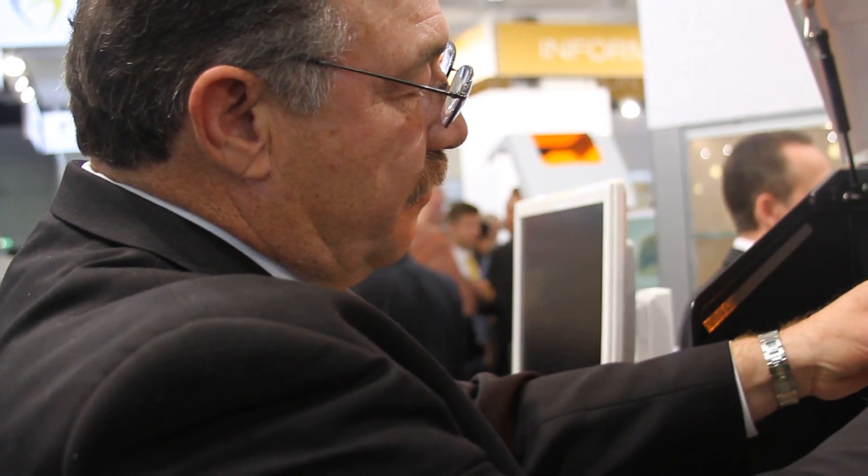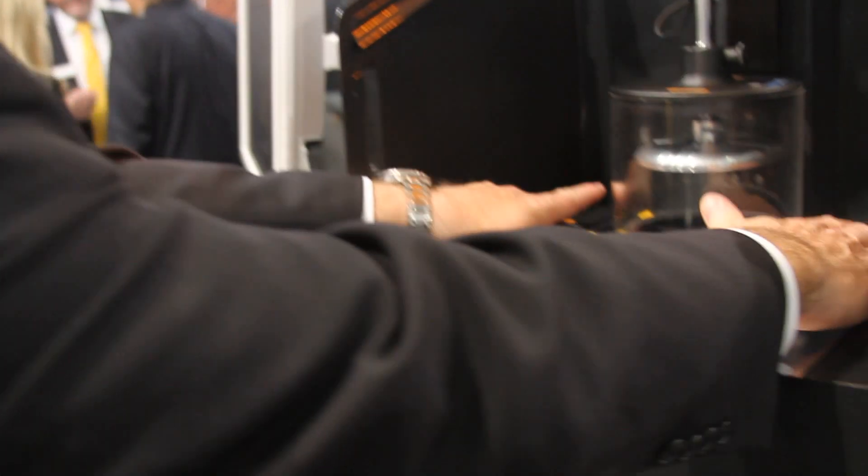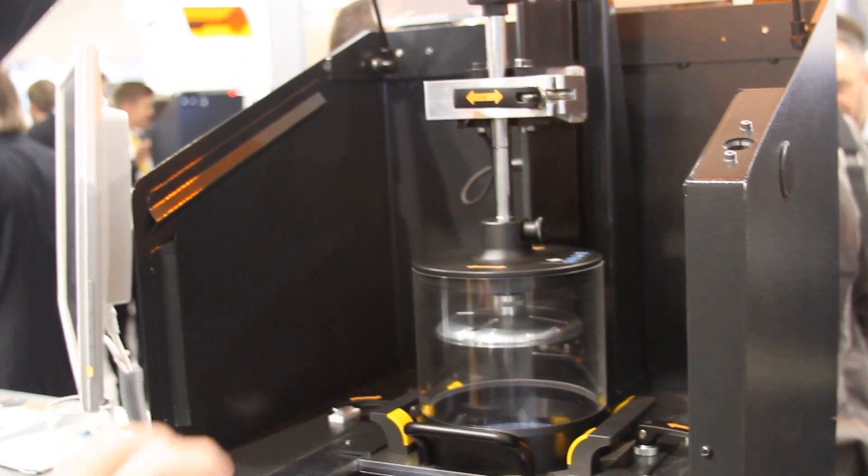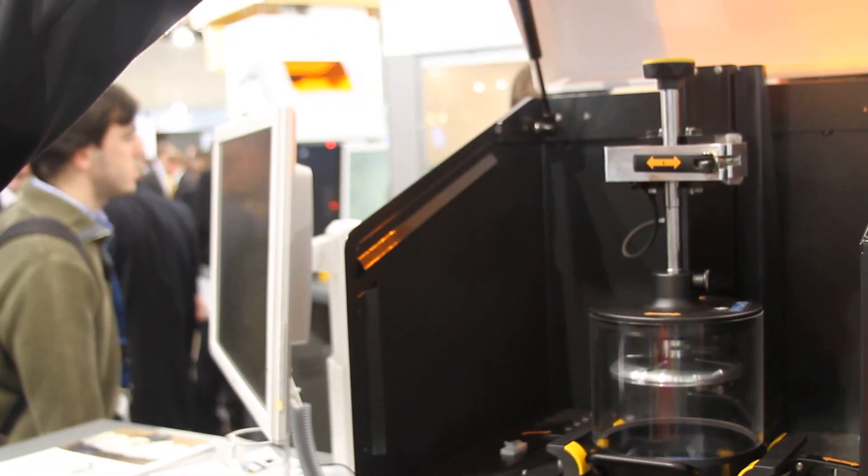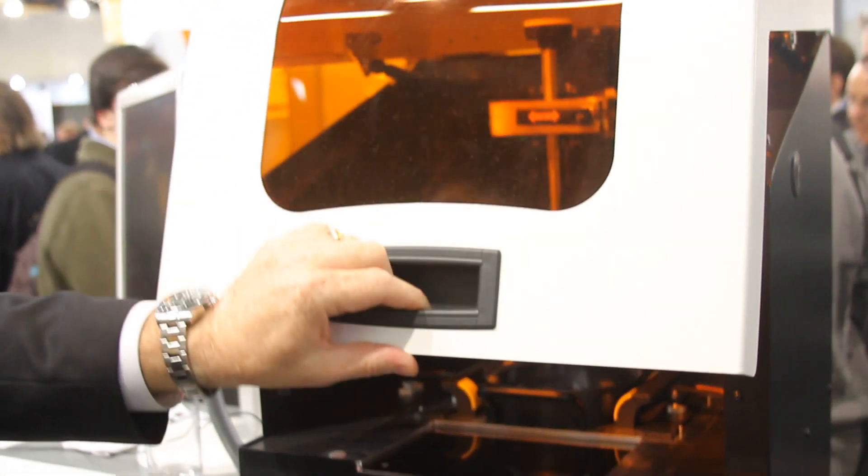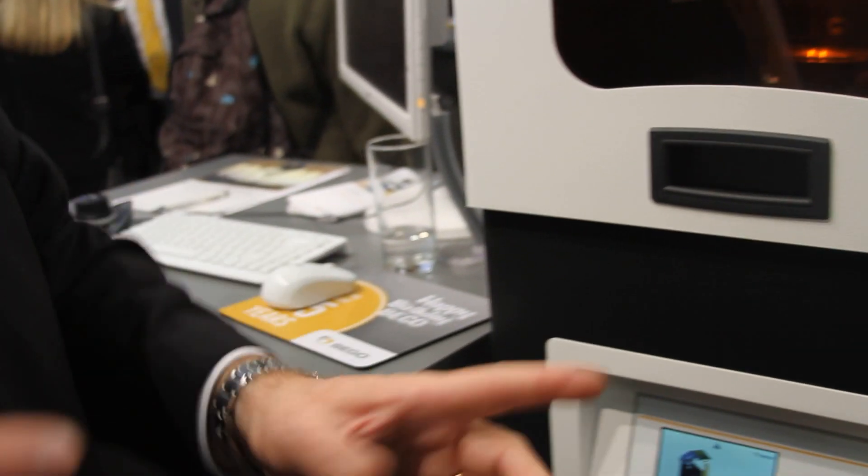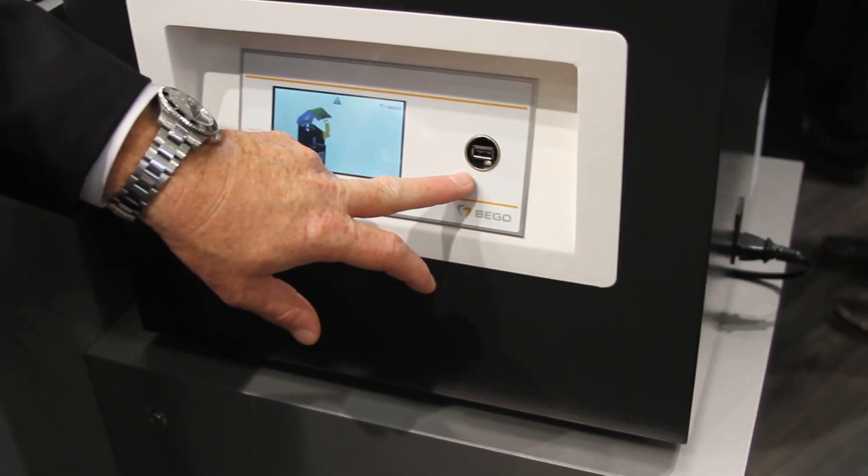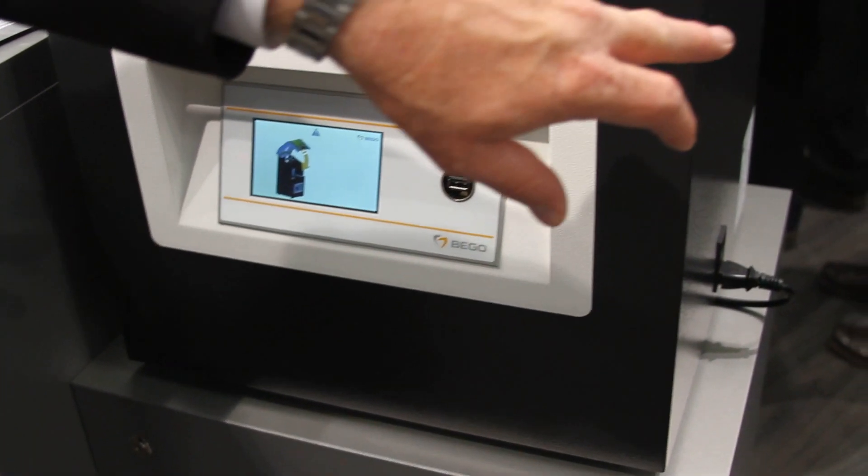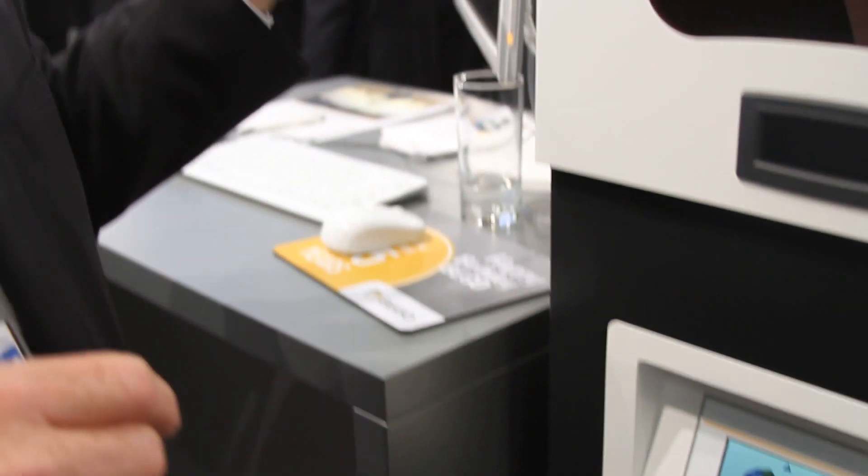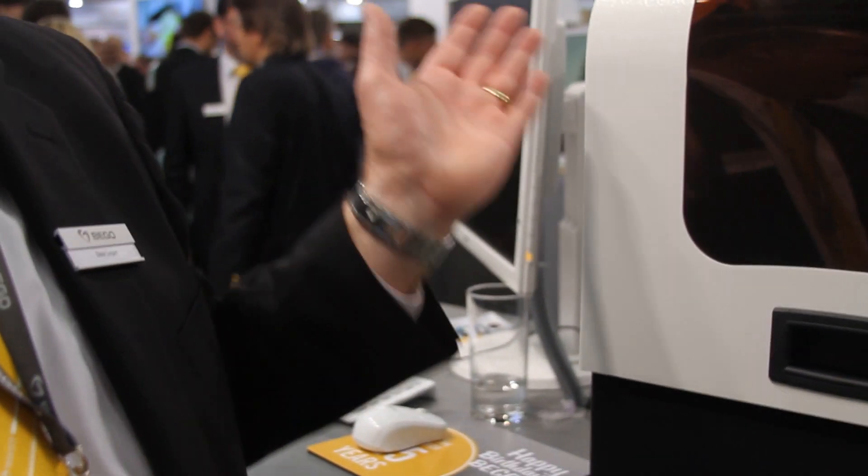So it locks into place again like this. You close it. Once you close the door, you have options of using USB sticks for each application, or you can have it wired straight into your scanner. You can just send an STL file directly to the machine itself.